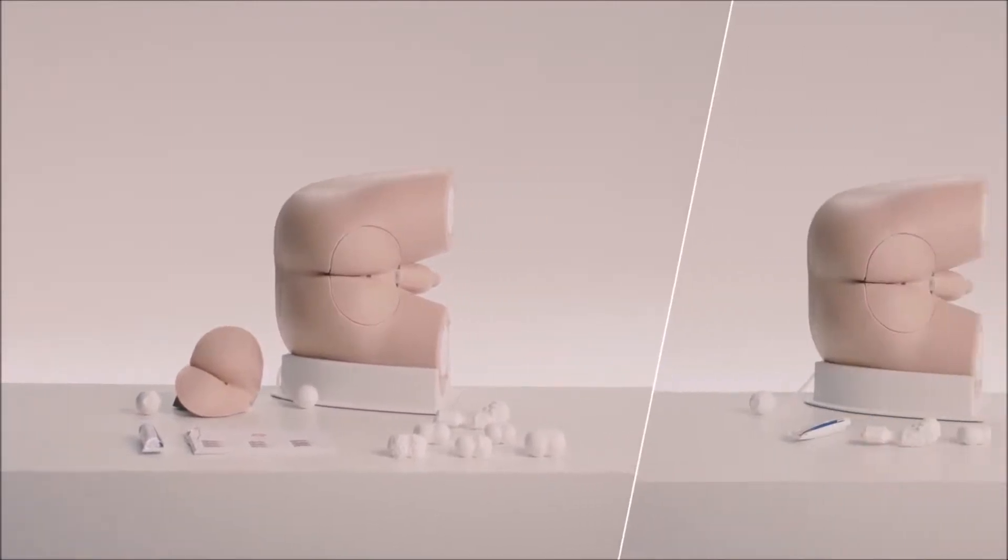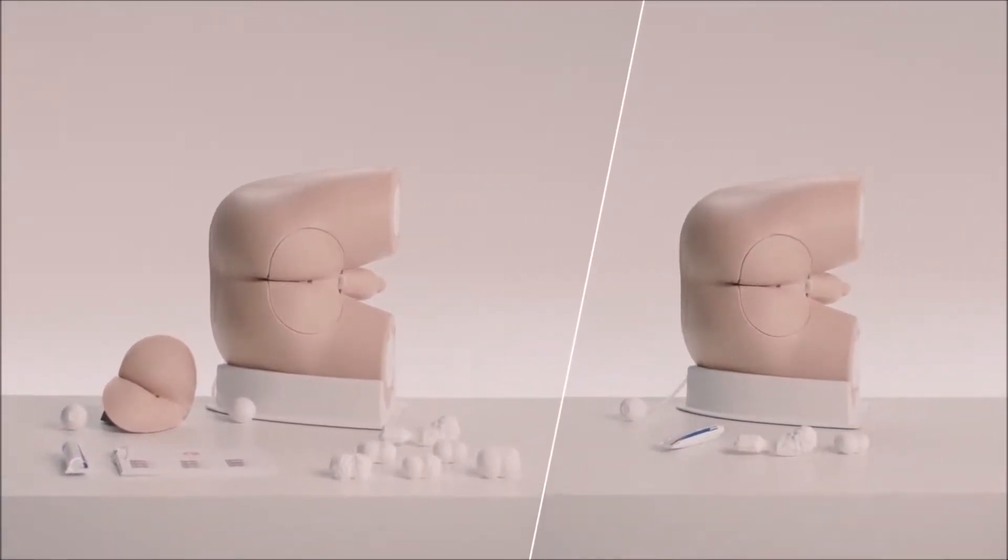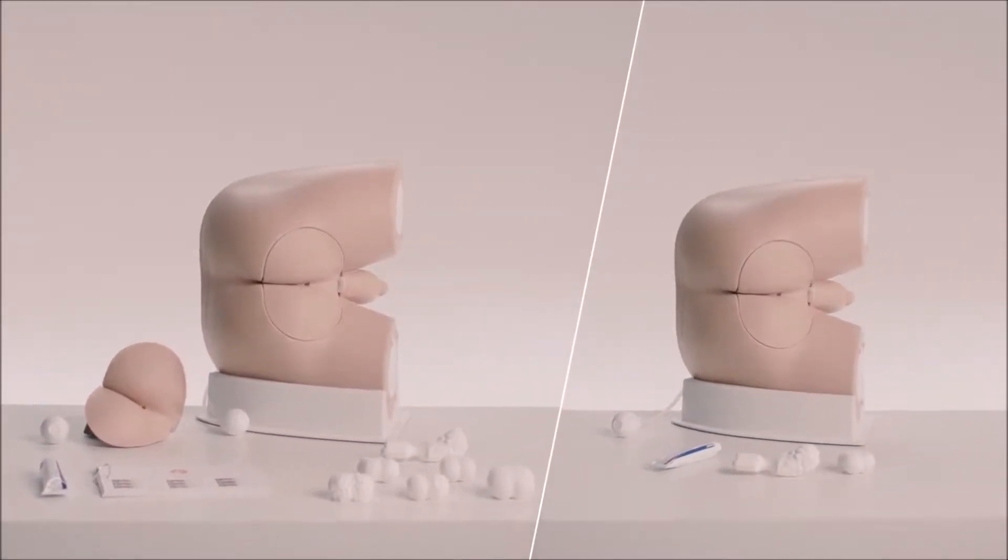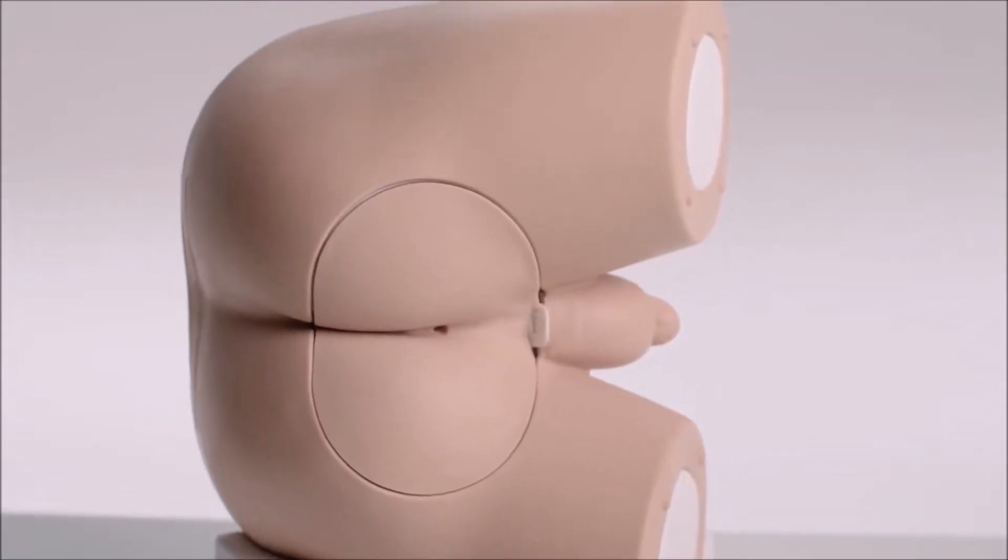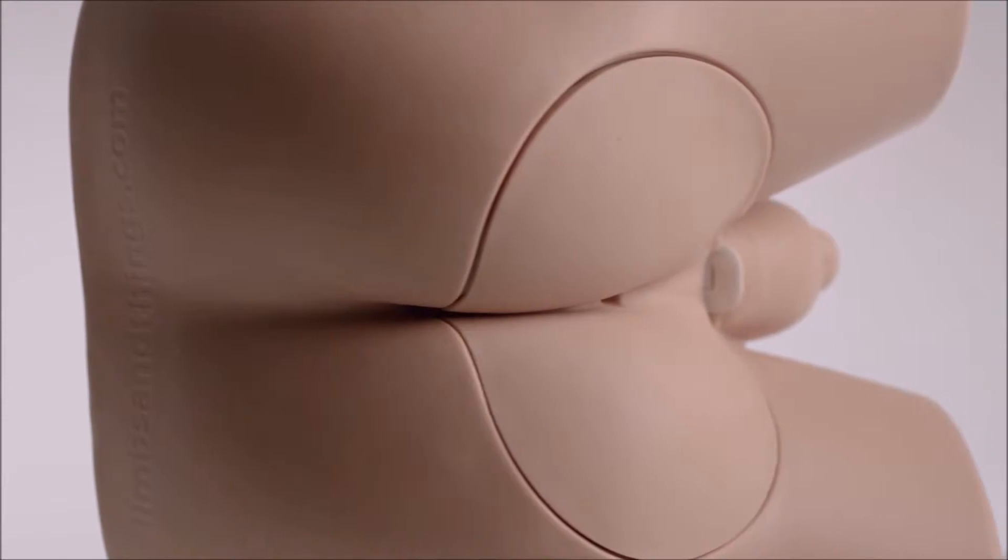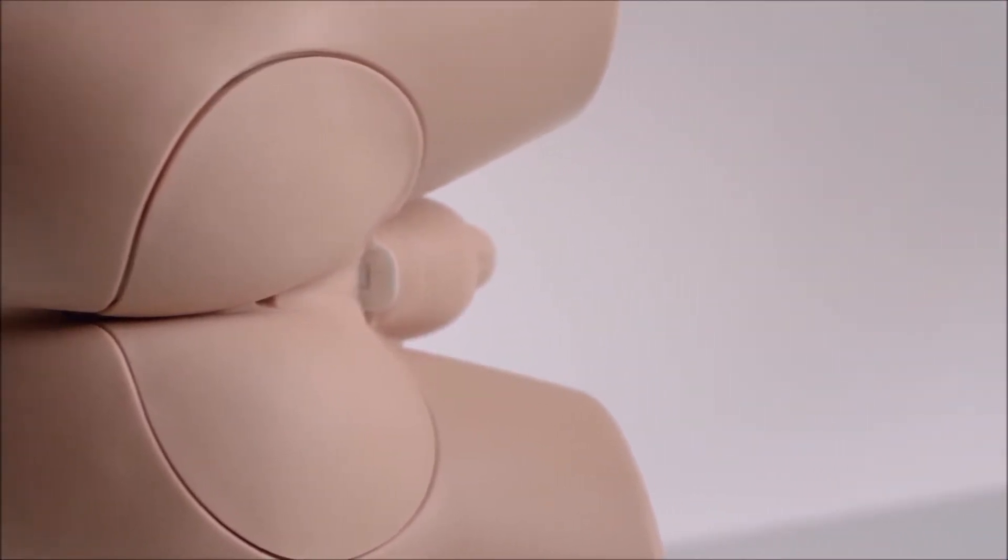This is the Advanced and Standard Male Rectal Examination Trainer from Limbs and Things. An anatomically correct male pelvis, it offers realistic and repeatable training in the core skill of digital rectal or PR examination.